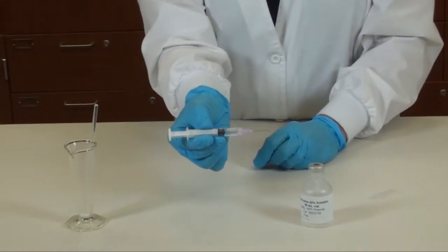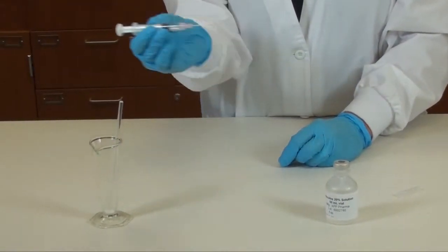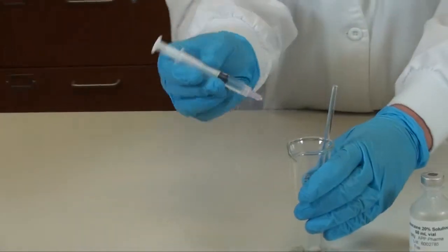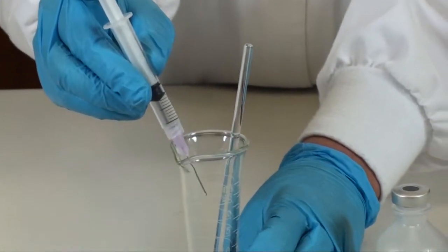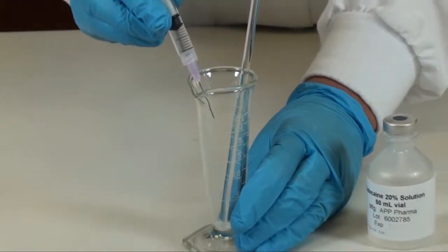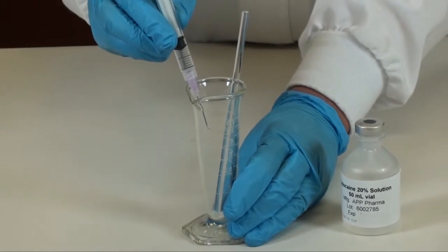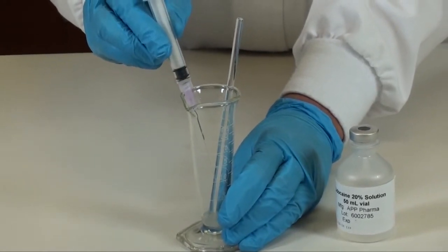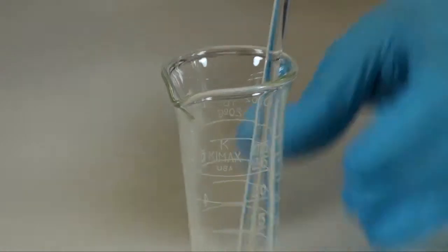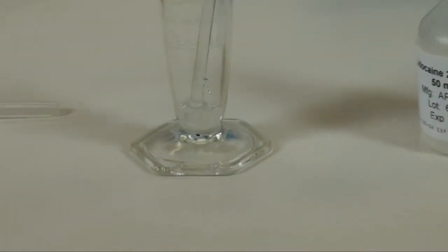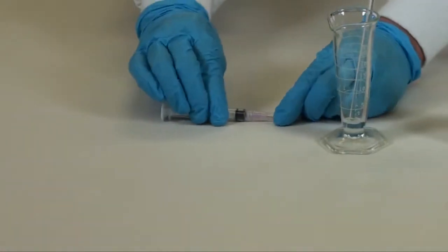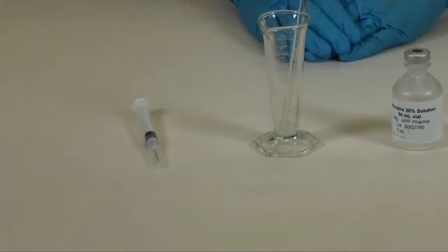Go ahead and take the syringe and transfer the liquid into your one ounce conical that contains the acyclovir. Carefully recap the needle at this stage. We will use this syringe in another step.